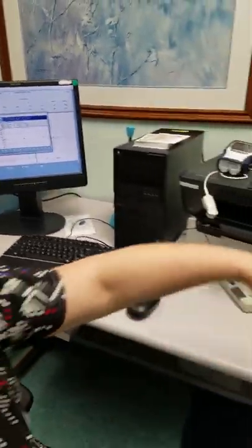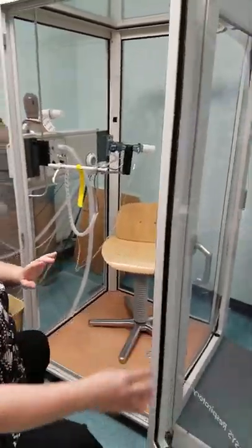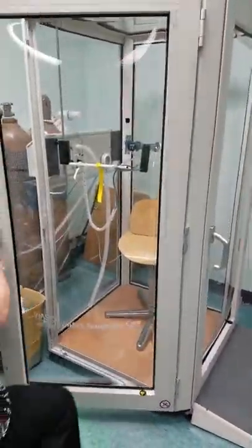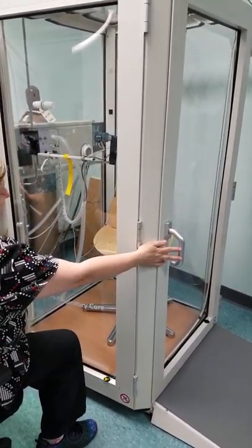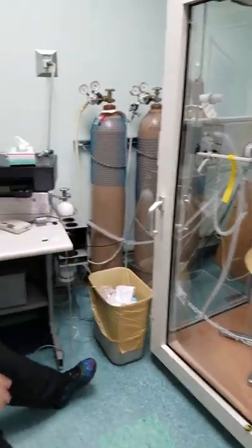You need to close up your body box. Make sure both doors are closed. I've had issues with this when it was a little bit open — it can't be open. It's got to be closed as well. Close both your doors and make sure they're secure.